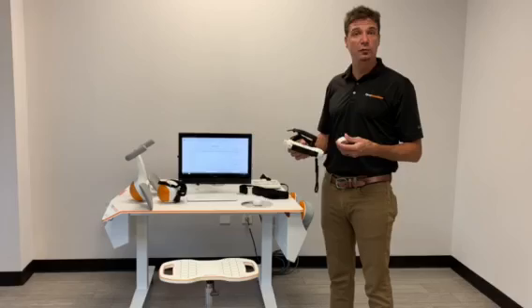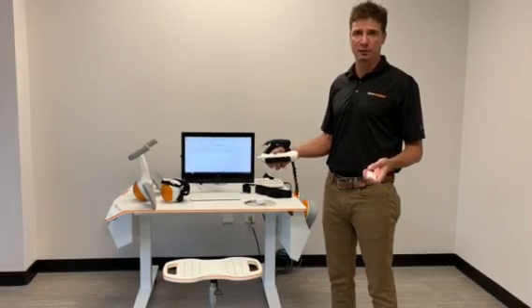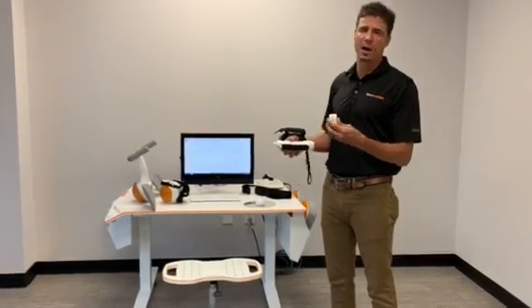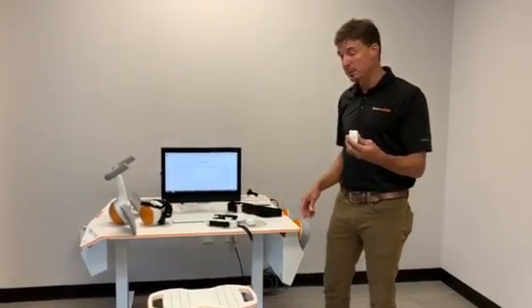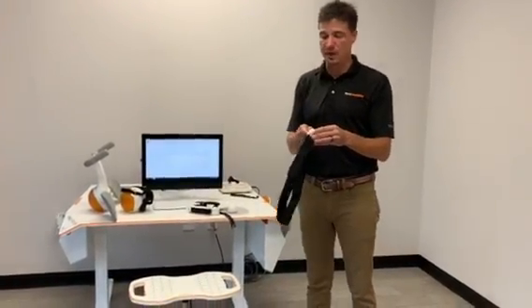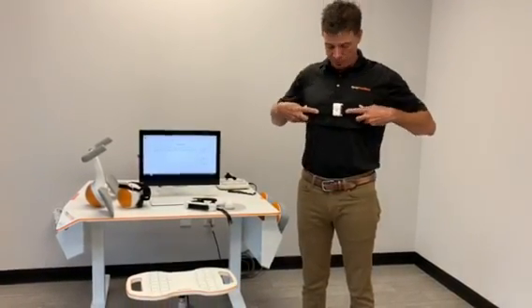The device can be used by either a physical therapist or an occupational therapist in various treatment settings, and it does a lot of different treatment activities. The device comes with several different accessories which make the therapy session fun. For example, I could use a motion sensor on one of the larger straps, place the motion sensor on the patient's trunk, and work on trunk control.